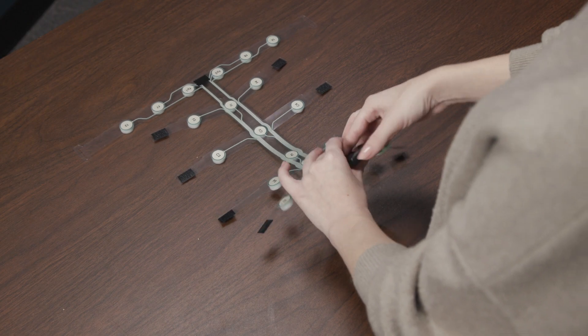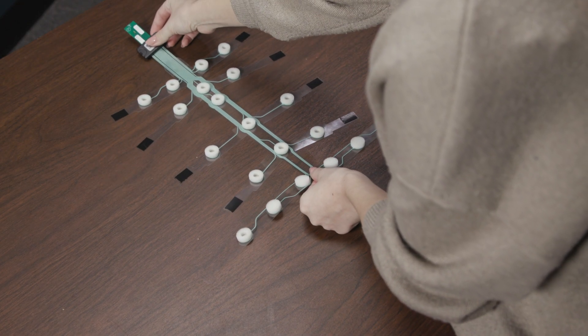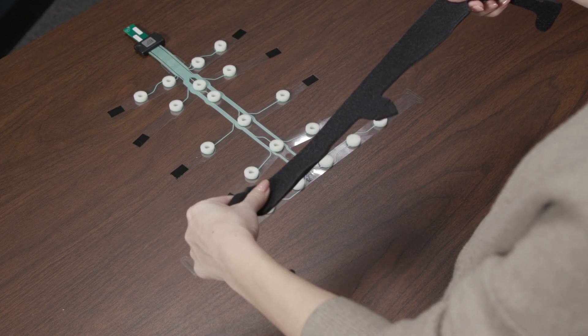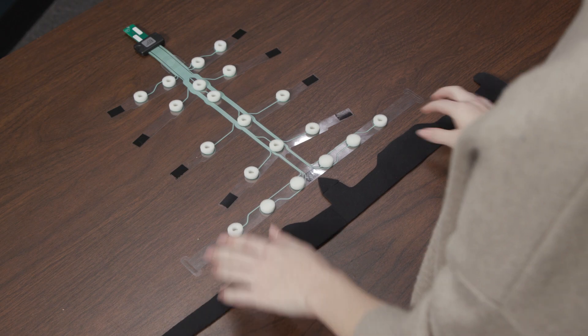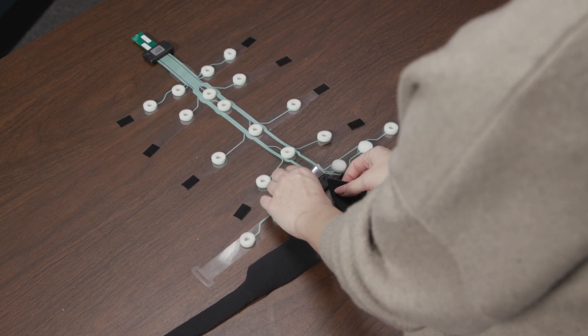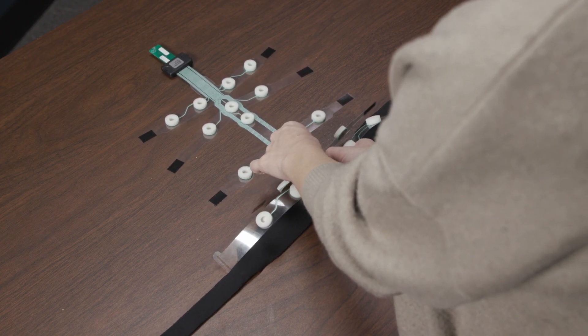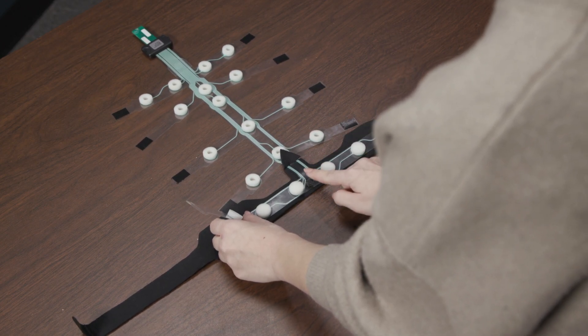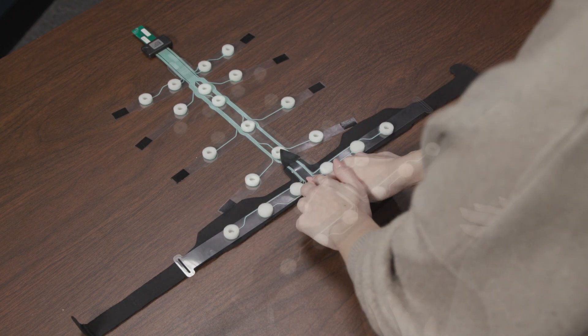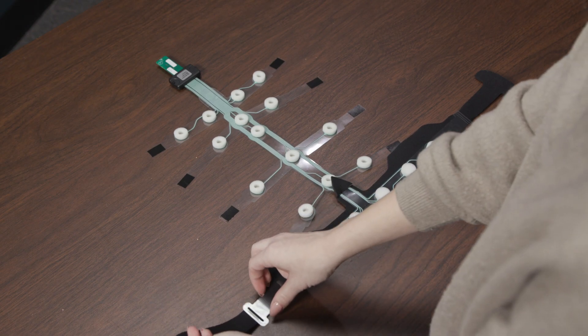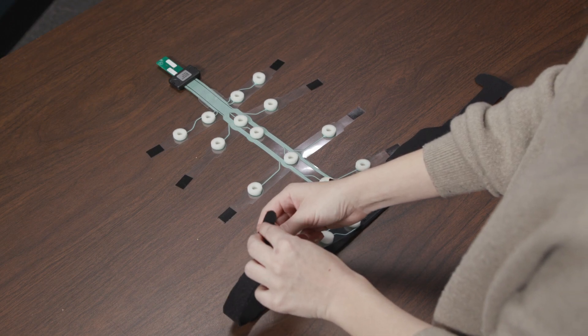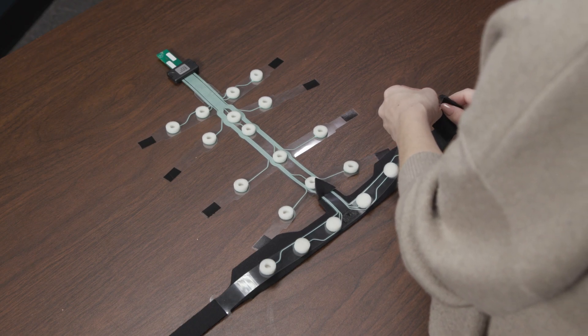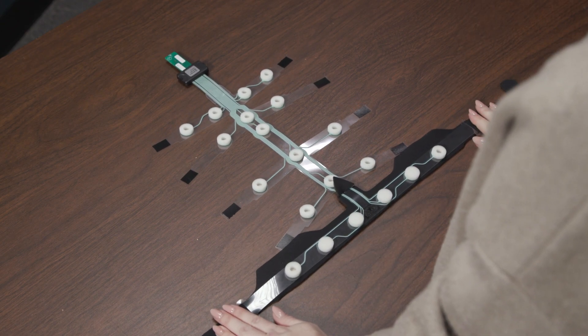Flip the adapter and strip over so the strip labeling is not seen and the foam donuts are face up. Please note, the four sensors on the forehead do not have the foam centers removed. This is for additional comfort. Place the head strap with the looped or fuzzy side of the strap facing down. With the strip still facing label side down, carefully feed the triangular tip of the strap through the hole on the front of the strip. Center the strip on the strap and firmly press the Velcro down as straight as possible to set its position. Once the strip is secured to the strap, unfold the Velcro side of the strap and feed it through the appropriate slot on the strip. Tip the barbell side of the strap and insert one side of the barbell before pulling the strap through. Folding the strap before passing it through the strip slot may cause damage.